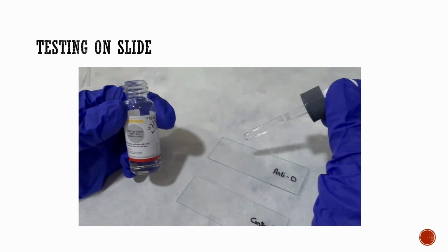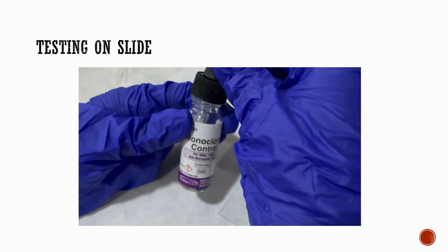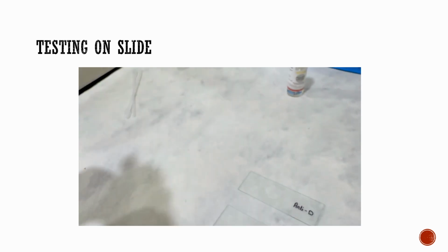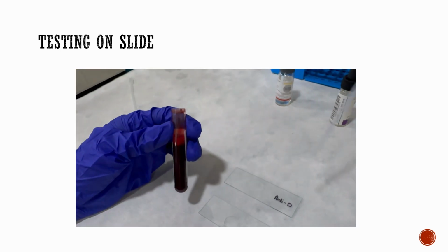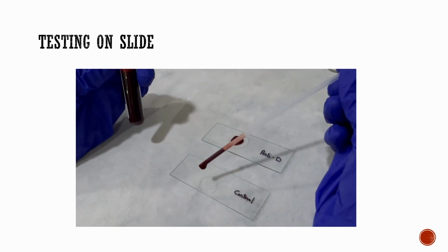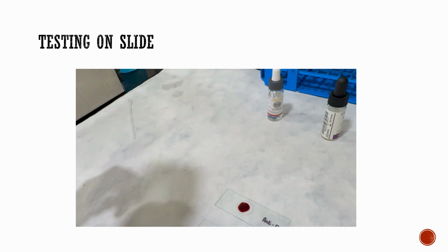On proceeding with testing, first we place one drop of monoclonal anti-D reagent on the labeled slide and another drop of monoclonal control on its labeled slide. Now we add approximately 40 to 50% prepared cell suspension, one drop each to the anti-D reagent and to the control.